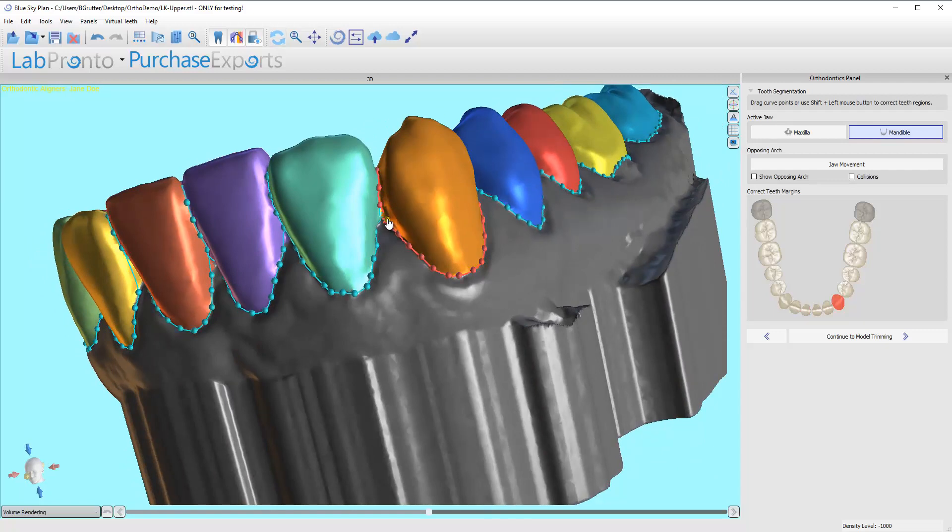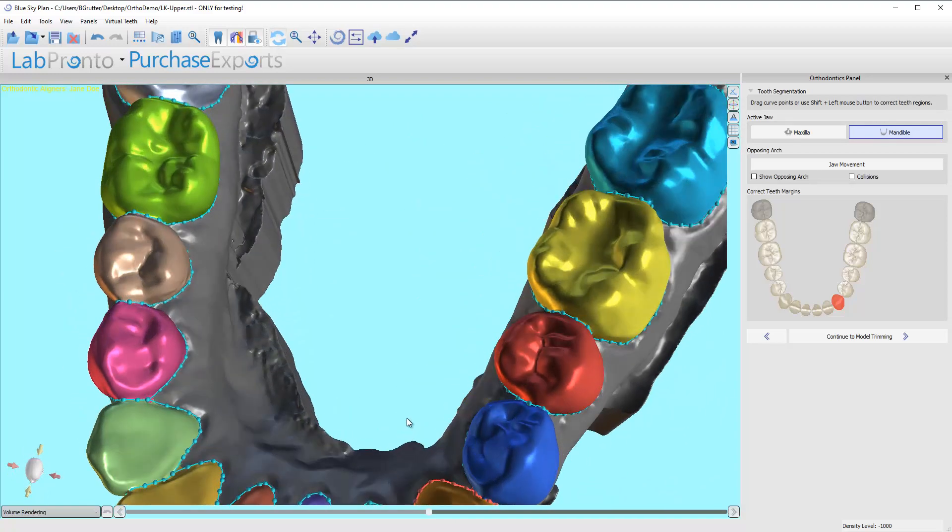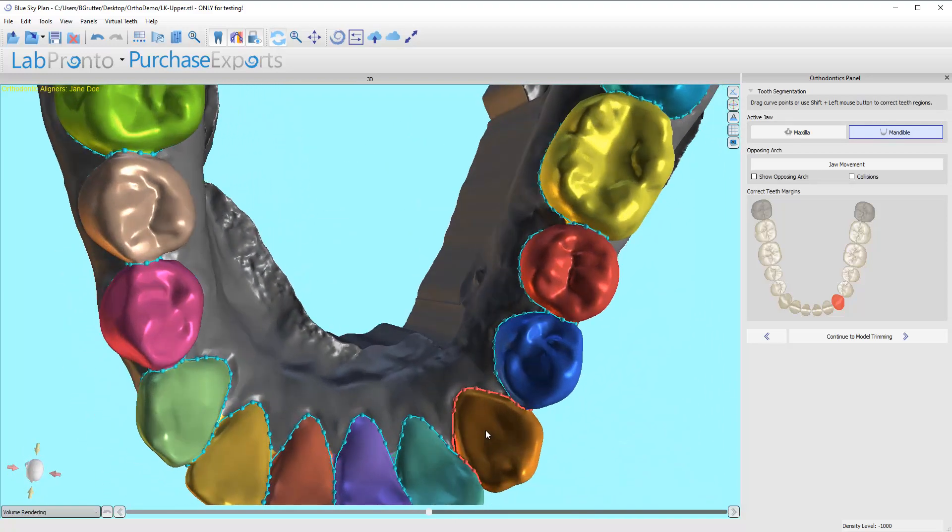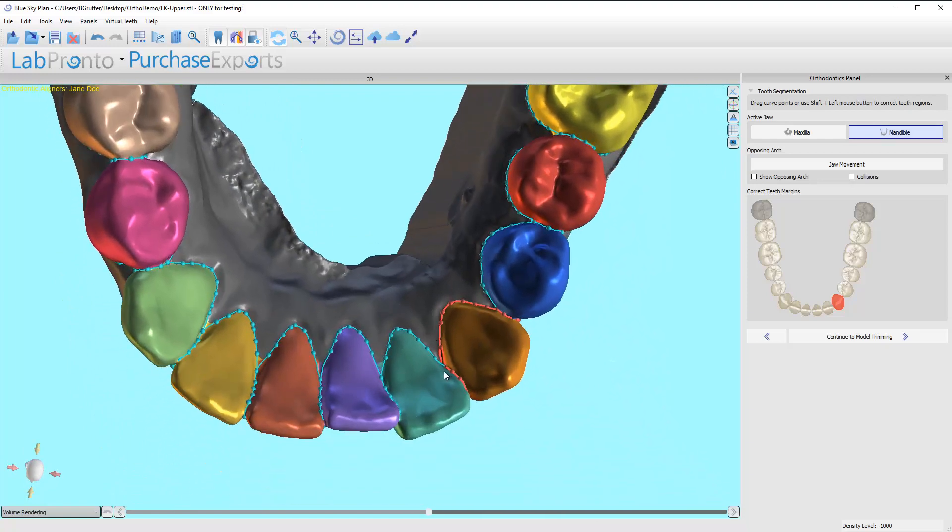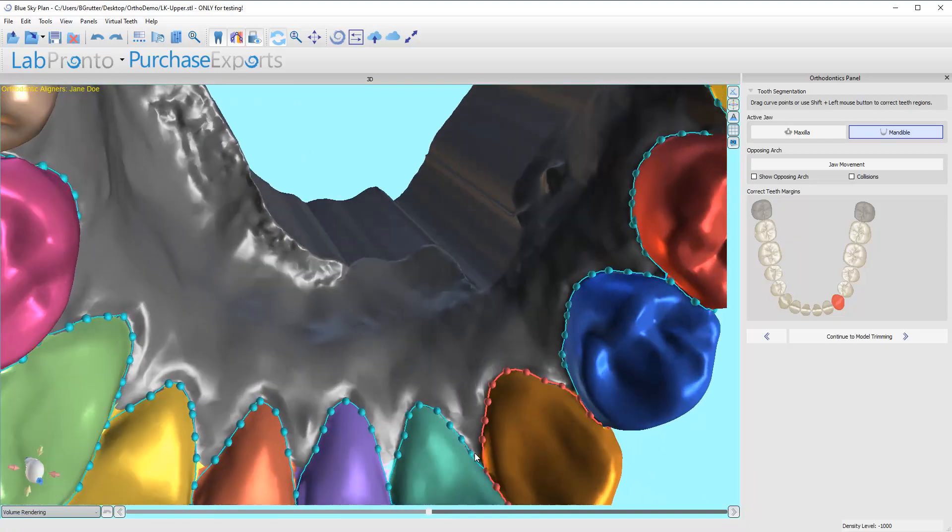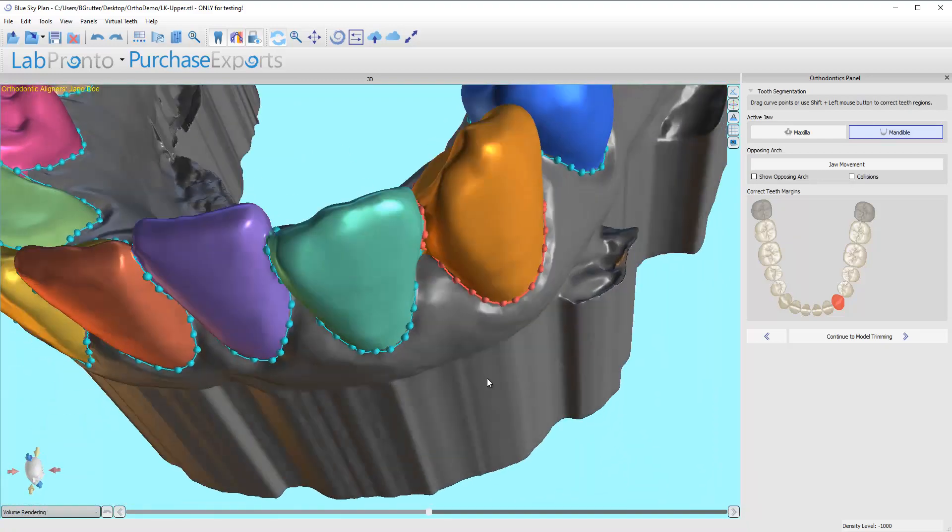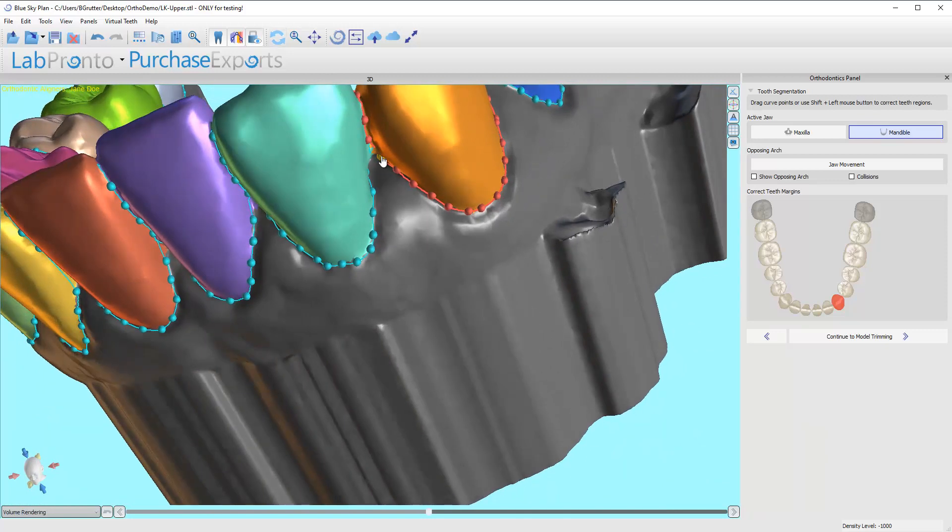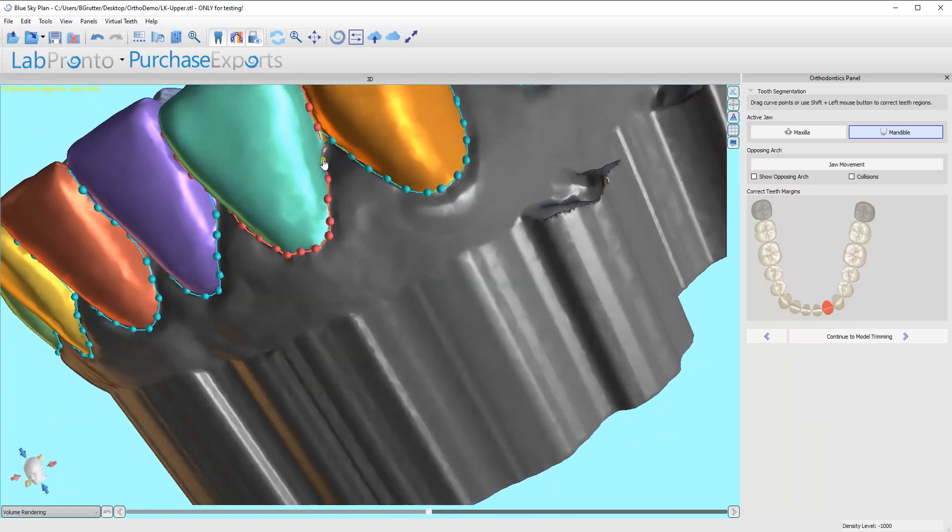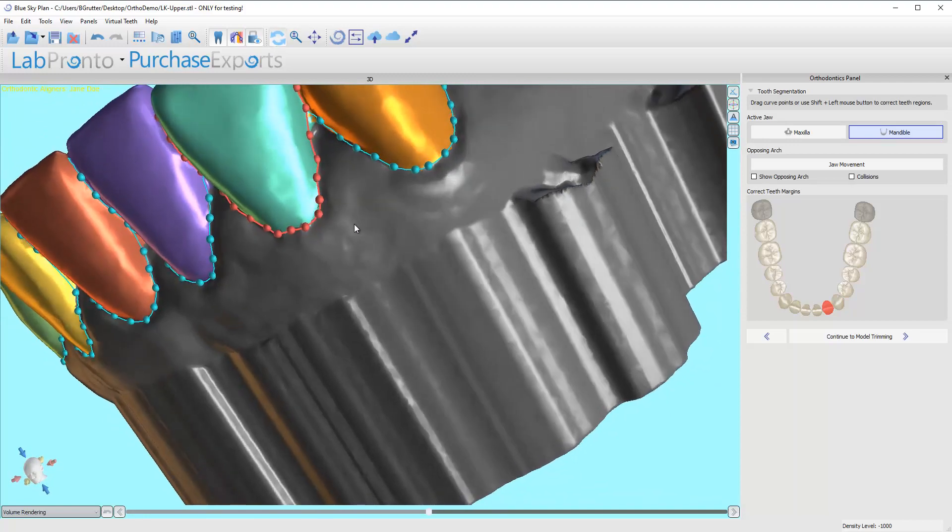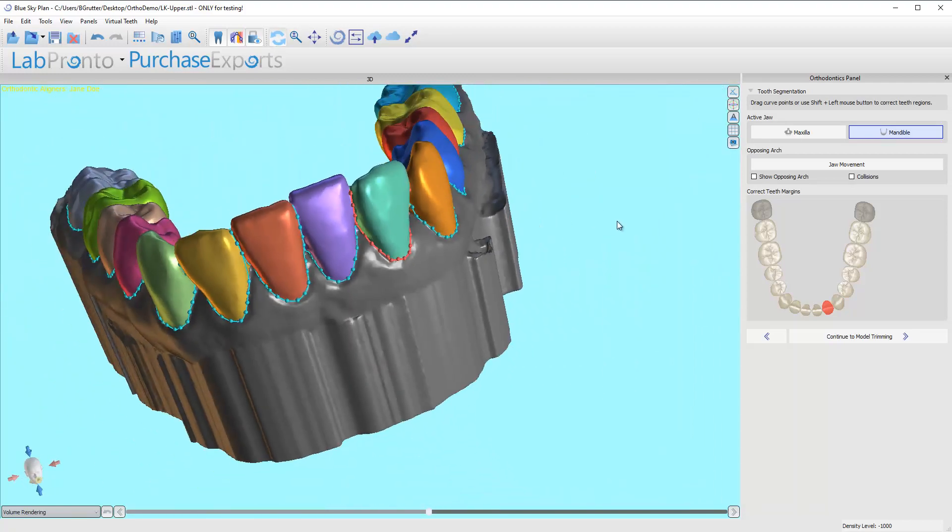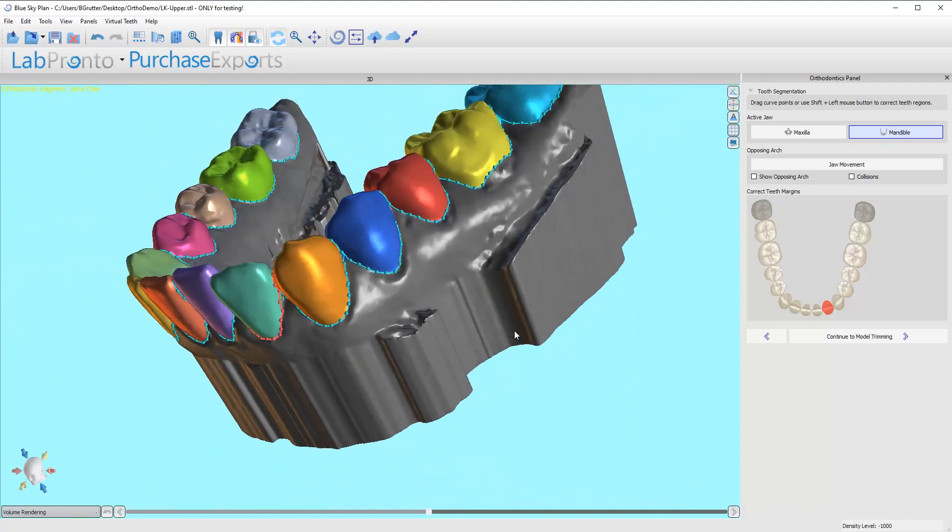I feel like there's got to be a node in here somewhere that's a little bit... Let me control Z. Anything you move, something you don't like what you did, just hit control Z and then it goes away. So I just like the lines to be very visible. I don't like them to disappear. That can cause problems.